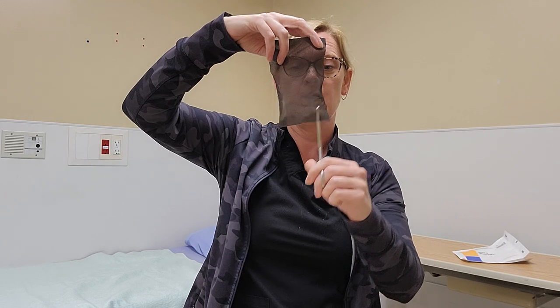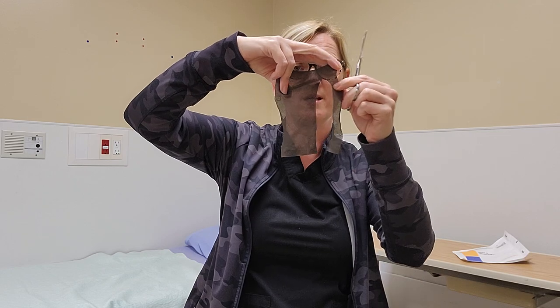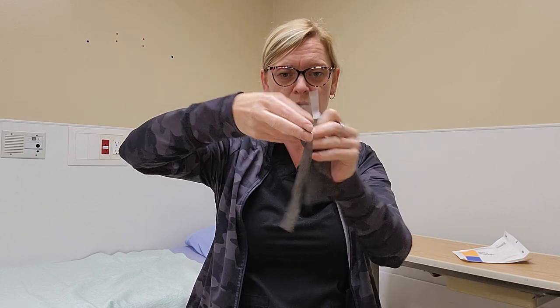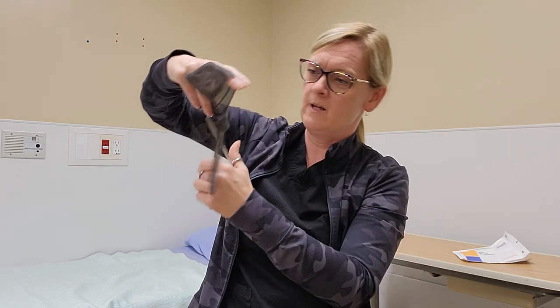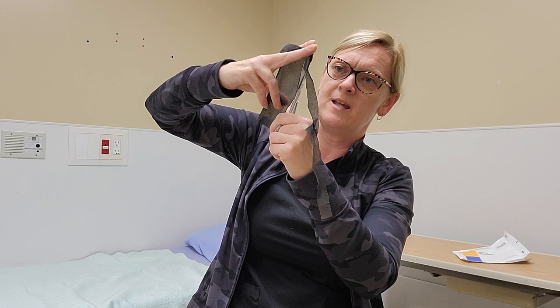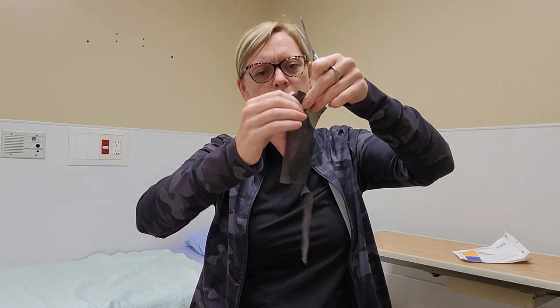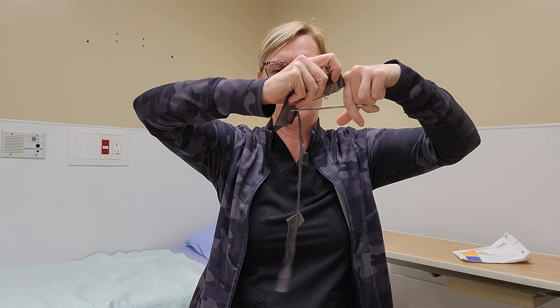When I cut it, I cut all the way up but stop before I get to the end because it's still super strong — it's not going to break off. Then I cut up the other side. So I can make this rectangle into a very long piece of packing. Works great for wicking abscesses, especially the smelly ones.